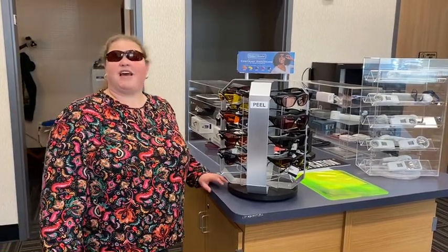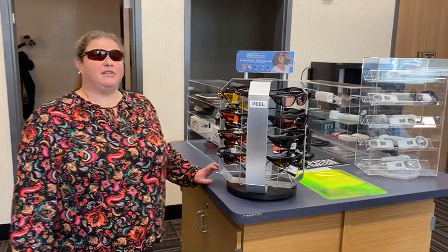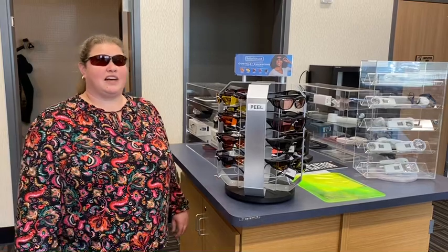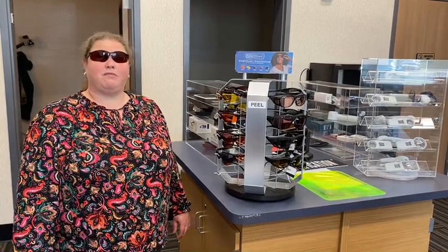I find that I have less frequent headaches if I wear these in fluorescent lighting or out in really bright sunlight. The Amber still allows me to see pretty good contrast. That's not saying that's the perfect color for you, but it's my color.